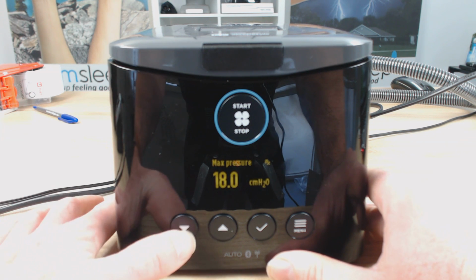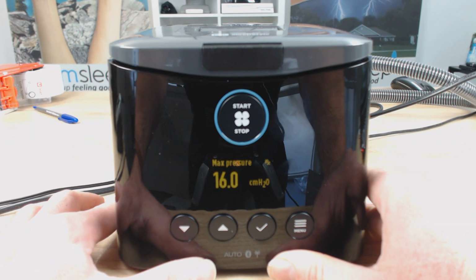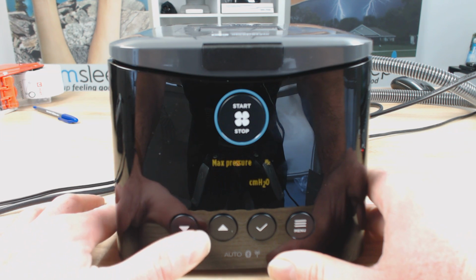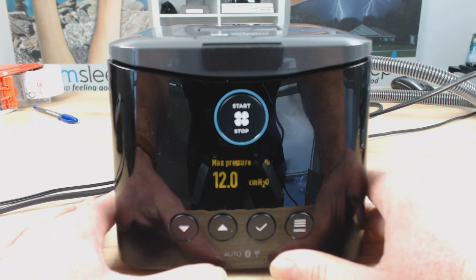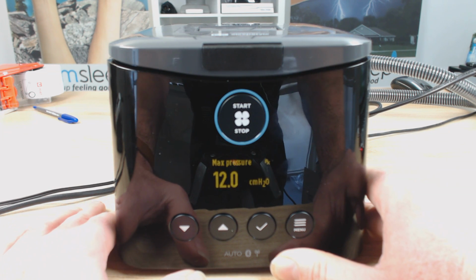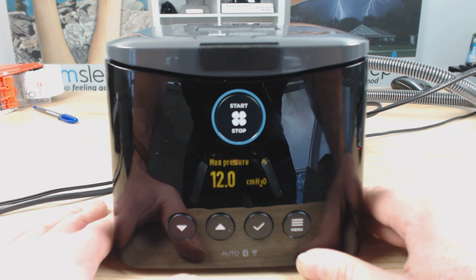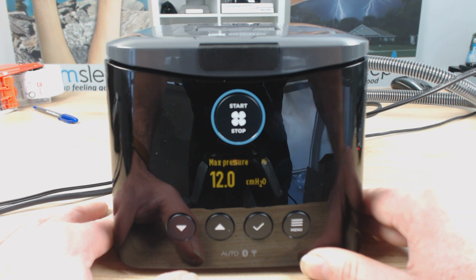But saying that, this can be a handy level to change if you're really struggling with the therapy pressure. And what you can do is you can bring it down to a level that you're comfortable with, and gradually, as you get more comfortable with the therapy, increase the max pressure as you go. So you're kind of just easing yourself into the therapy. It's a really good way to get patients compliant, and a really good way if you're someone who's really struggling with CPAP, struggling against the pressure's waking you up at night time. Bring the cap down a little bit and pressure down, and then gradually build the pressure back up, the max pressure.